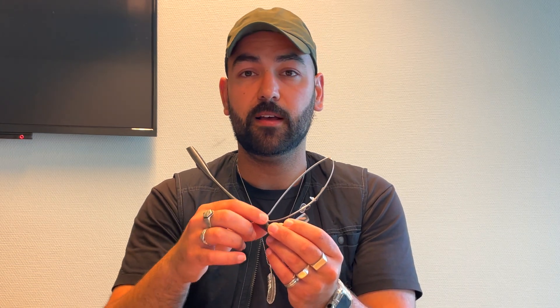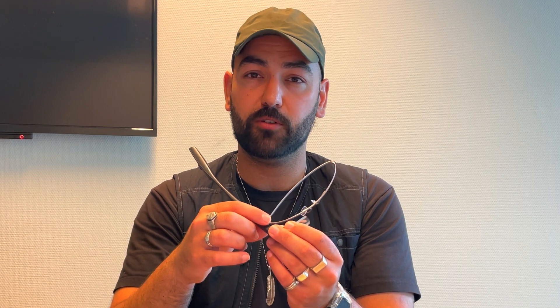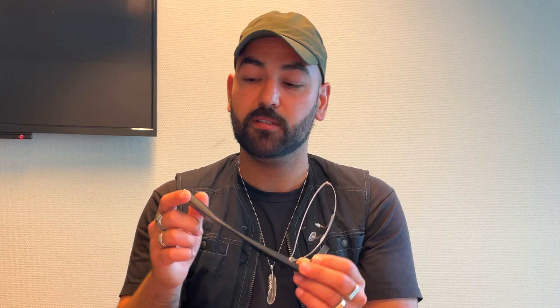This is on top of the Envision glasses body, and if you touch it you will feel a metal bouncy button. Keep in mind this is not the power button, which is located towards the back of the Envision glasses. Now that we know where the hinge button is located, let's start using voice commands.